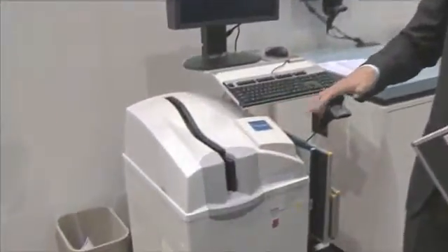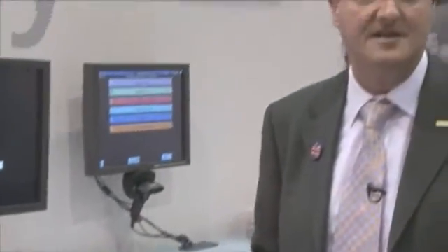If you have it inside the x-ray room, you can actually do your mammogram and put the cassette into the CR reader and then return back to the patient more quickly. And while you're doing the next view, the previous view can be being read by the machine at the same time. So that's a faster workflow. This CR machine is actually the fastest on the market for mammography — it does 79 plates per hour at the high resolution that I was just describing.